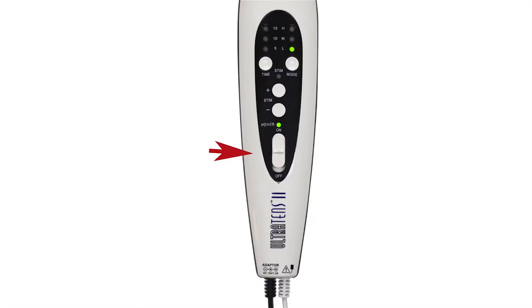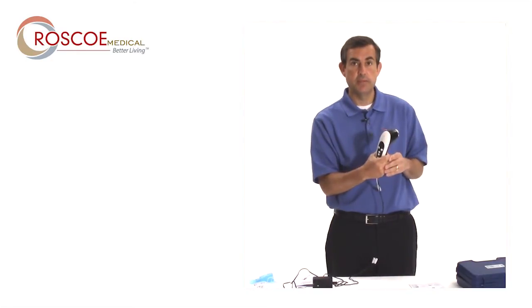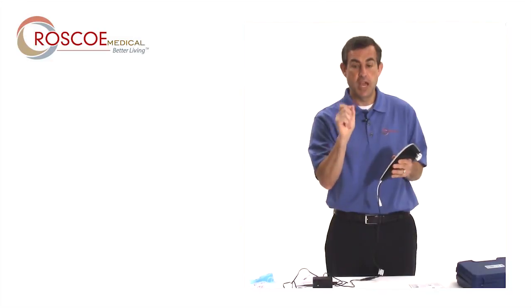I would turn it on, press the timer, low, medium or high, as your doctor prescribed it, as your dealer set it up, and then begin to use it. Or I could use what's called combo mode.